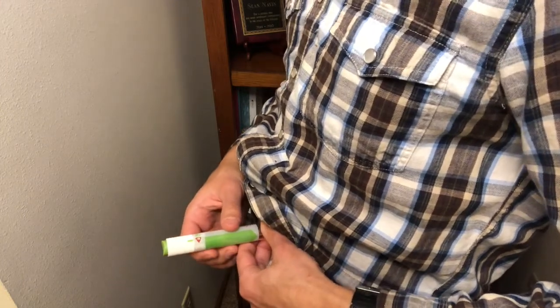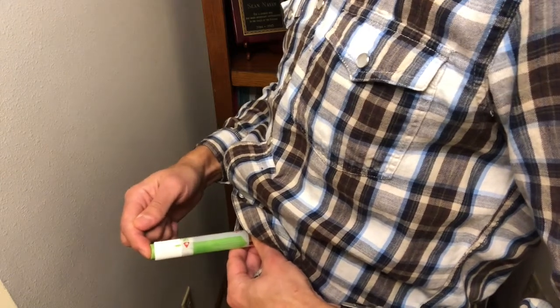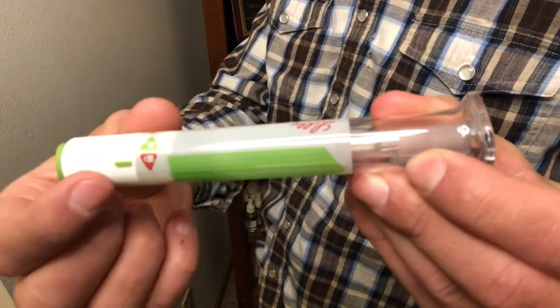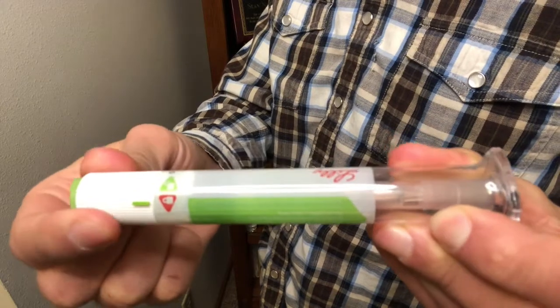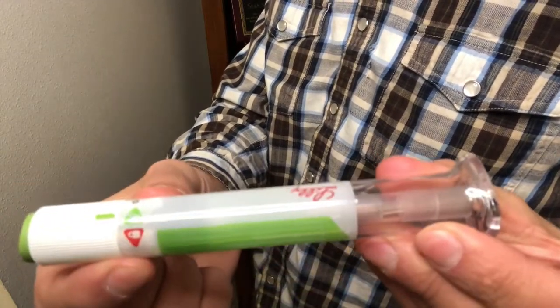When you're ready, before you actually hit the green button, if I push it right now, it's not going anywhere. That's because it's still locked. Remember, I mentioned it, one of the features is that there's a lock feature. So it's still locked. In order to push this button right now, I can't. You want to click it over to unlock it. So it's now unlocked there.